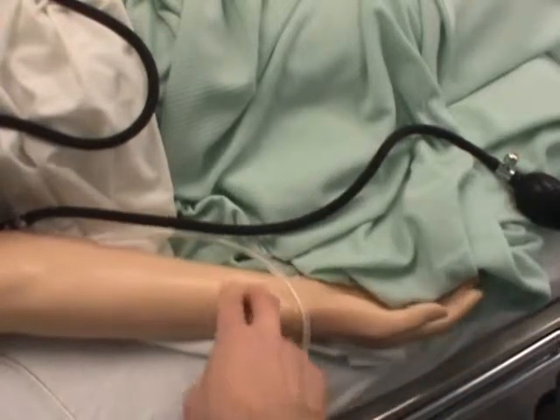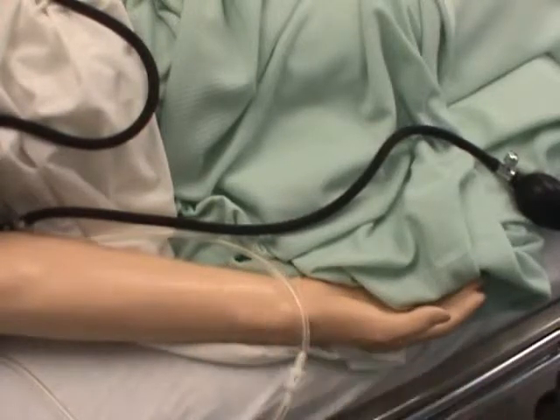That's kind of what you're feeling for — almost like an electrical charge. Of all the vital signs on the VitalSims, this one seems to be the least lifelike in terms of actually palpating and the actual sensation. But it does work, and you can count the pulses.